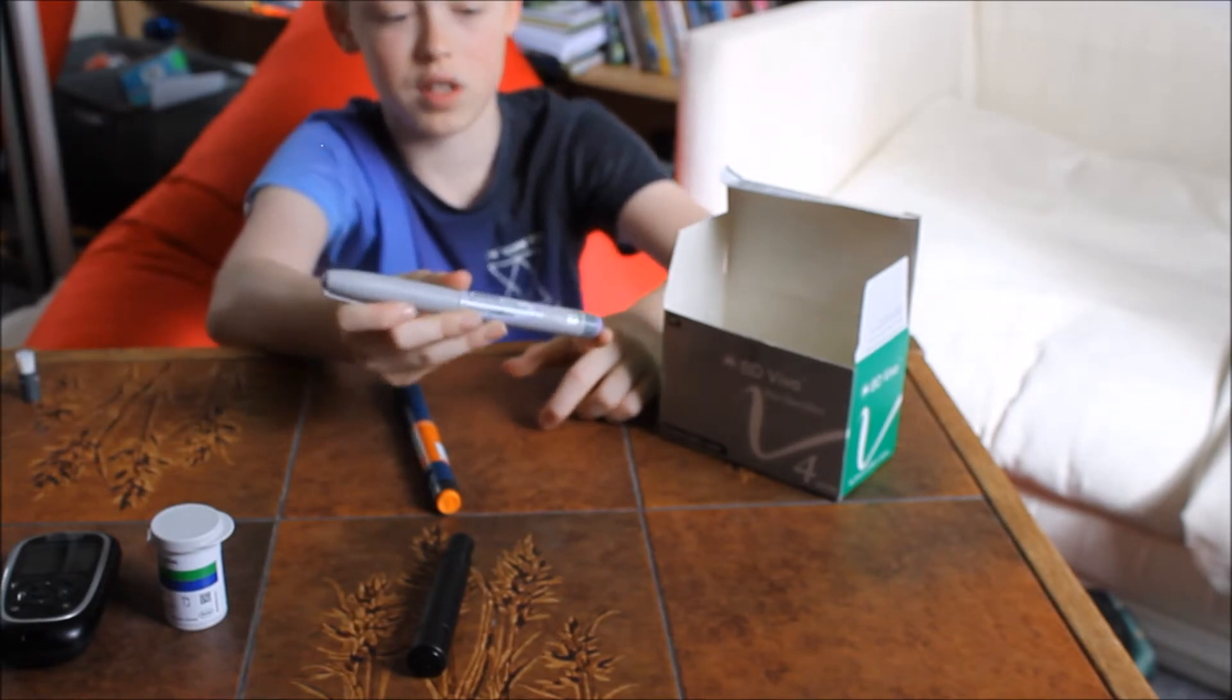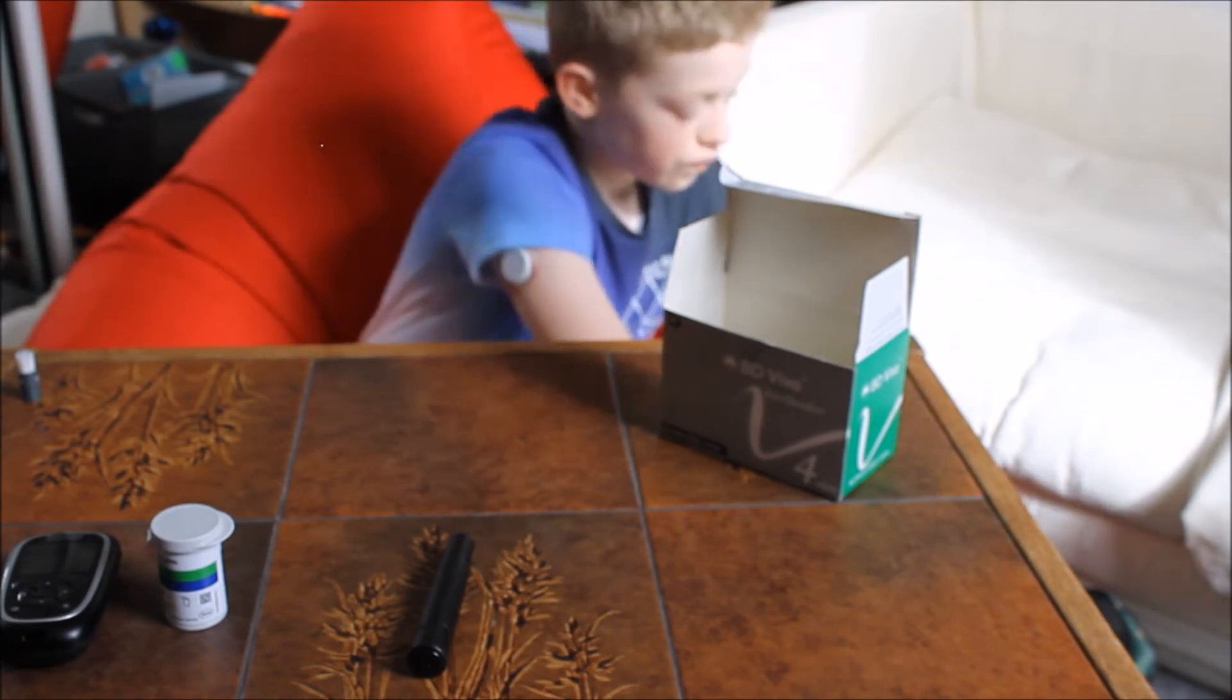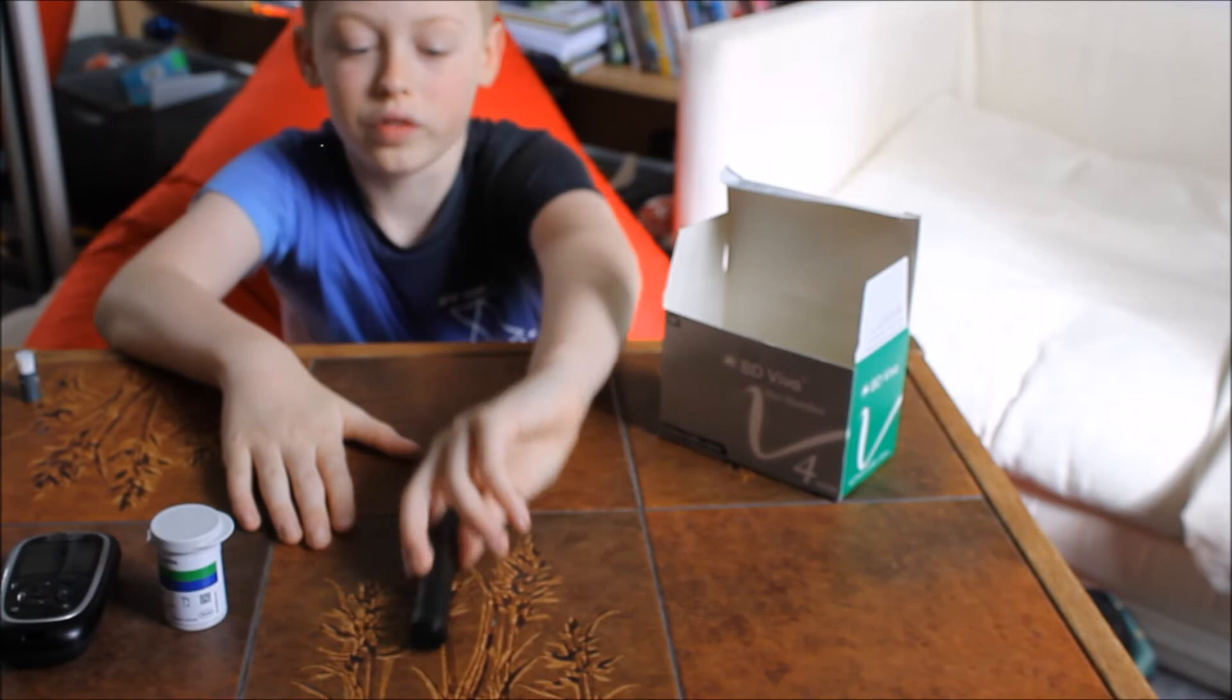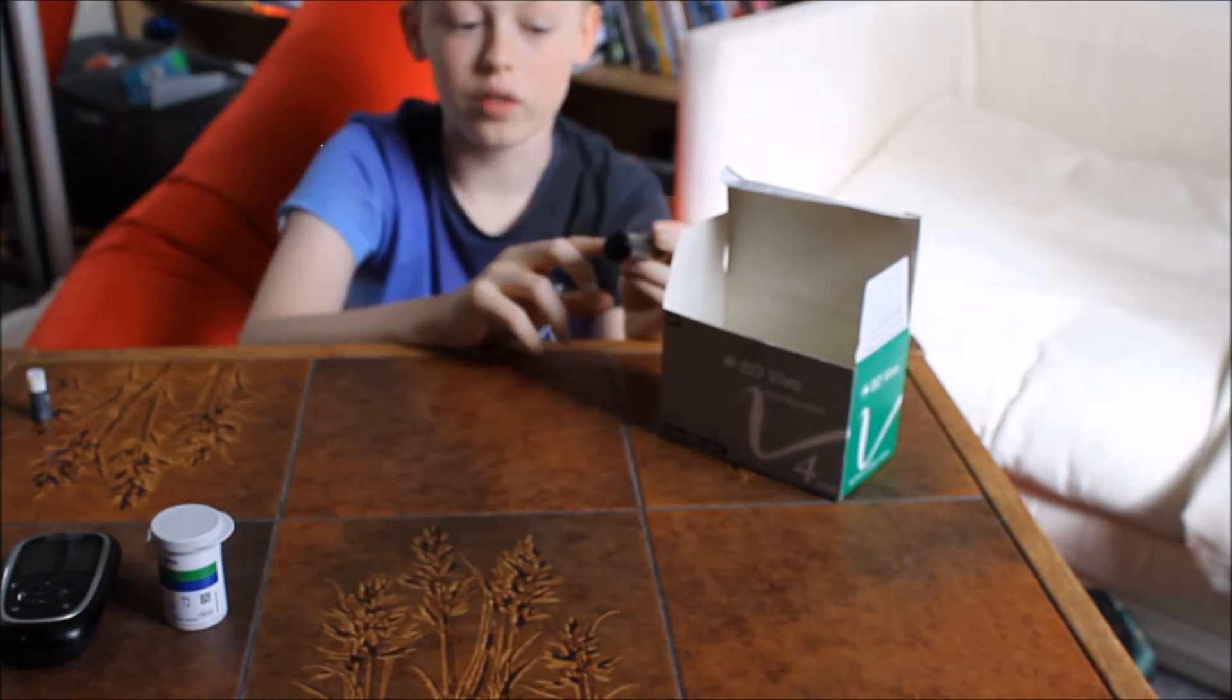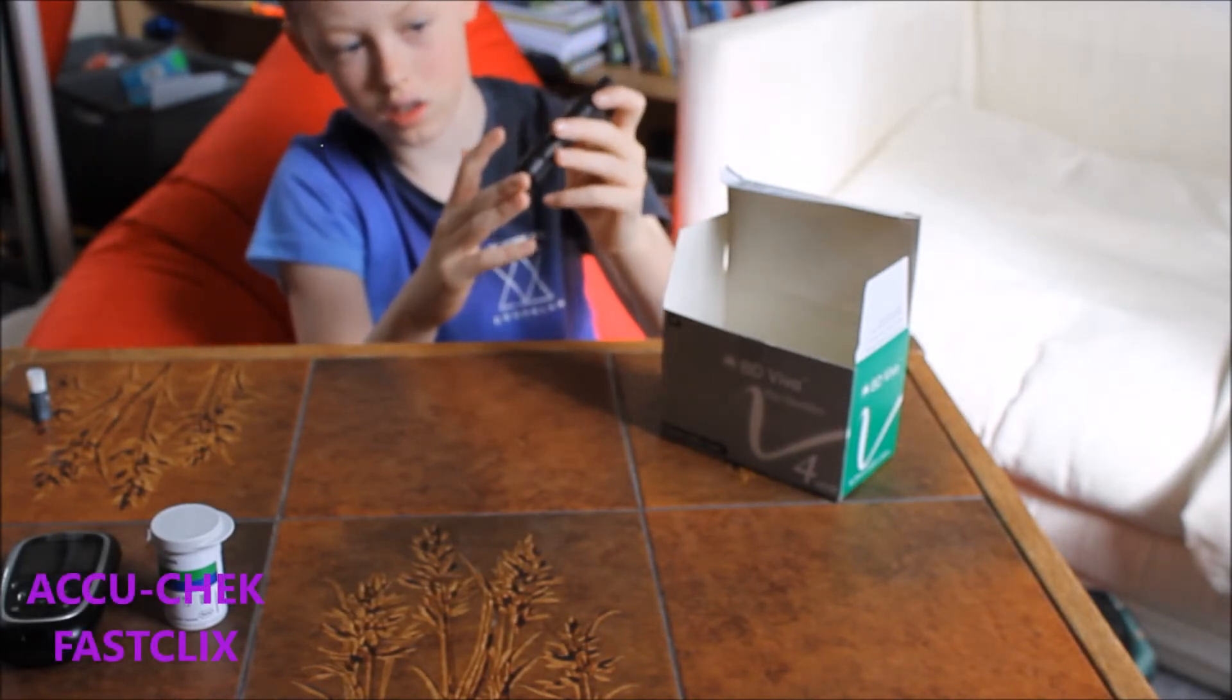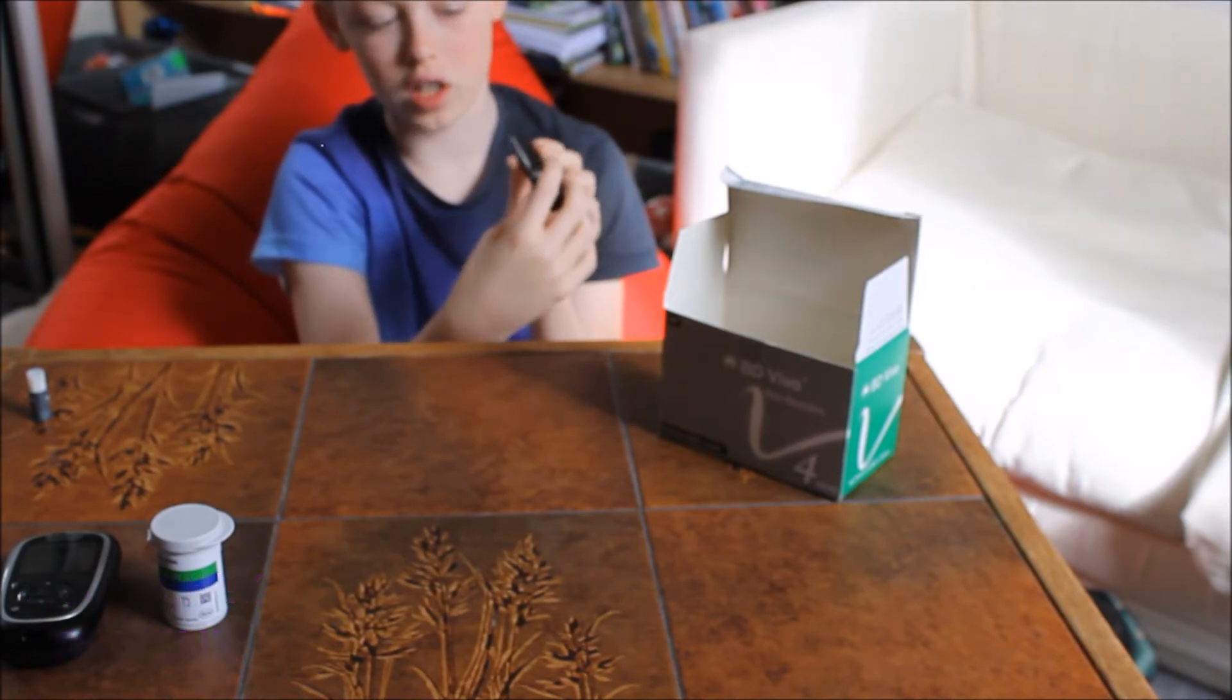Next we go over to this. I've already covered how to change it. So secondly, if you want to, every single day you switch this over to the right and then back to the left. Because now you can see that says five—that means there's five more days left in it.